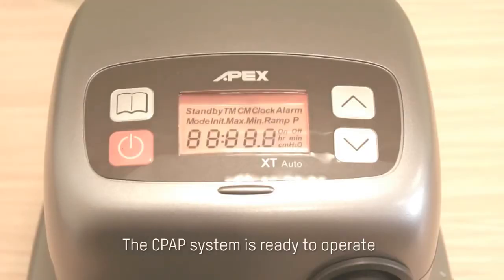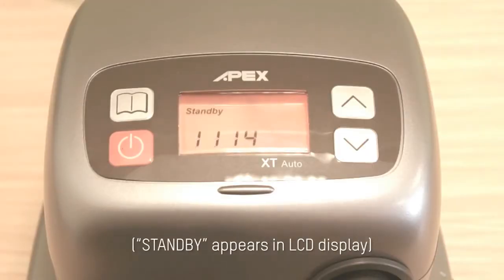The CPAP system is ready to operate. Standby appears in LCD display.